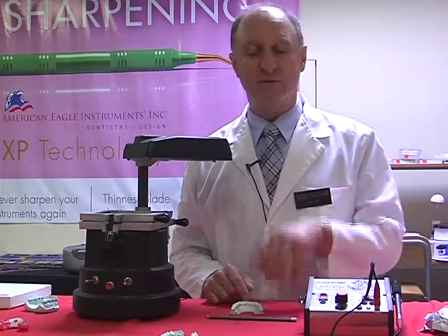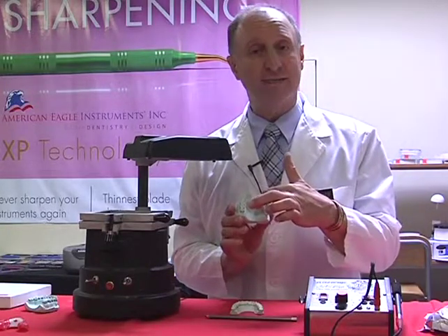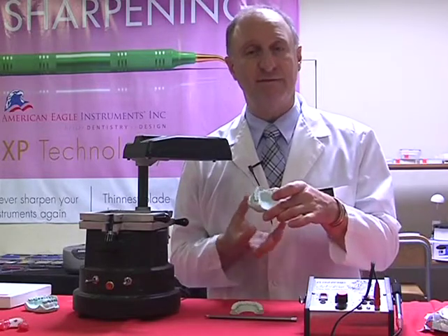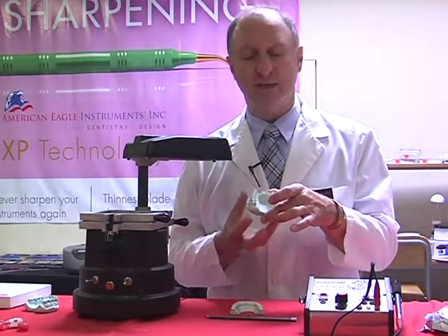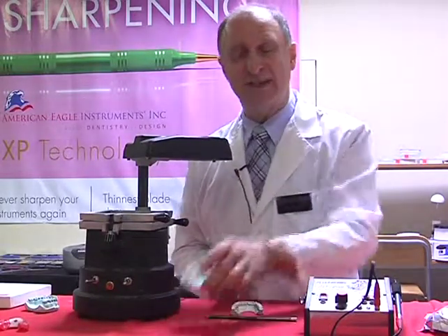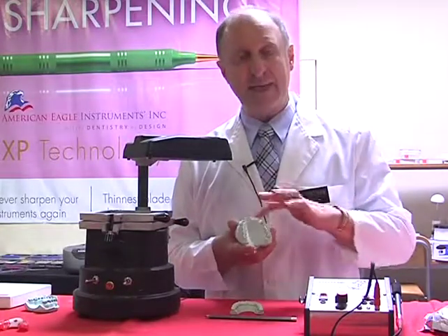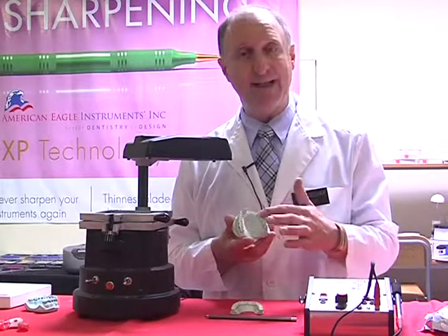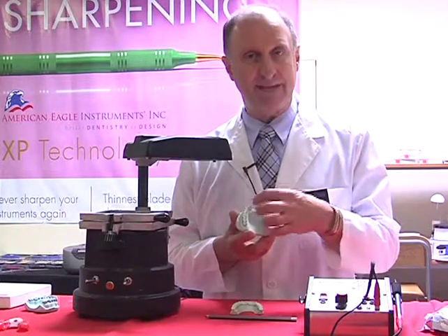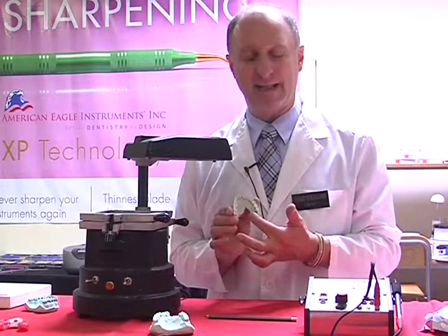Now, if we didn't want to remove the palate, we would normally take hold of the model that we've fabricated and, with a cross-cut rosehead burr, drill a hole through the model itself. That allows enough vacuum or pressure, whichever we're using to thermoform our materials, for adaptation. Because if I just put this onto our table and tried to adapt down, the material would adapt around the labial surfaces, but down in the palate, in the case of this maxillary model, it wouldn't adapt very well. So I would need to gain more vacuum or pressure, and that's the reason why in this case I've removed the palate.